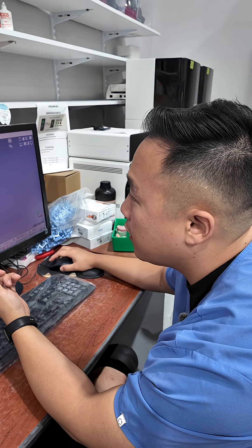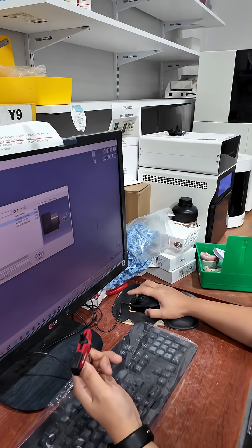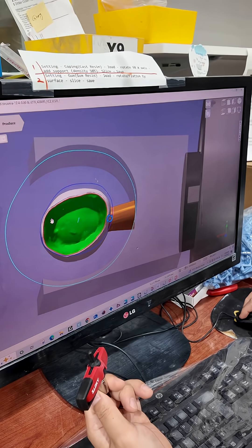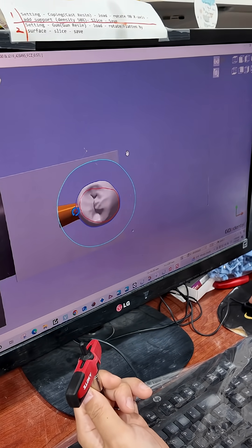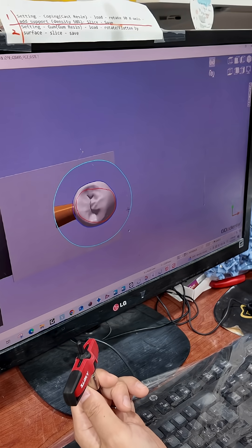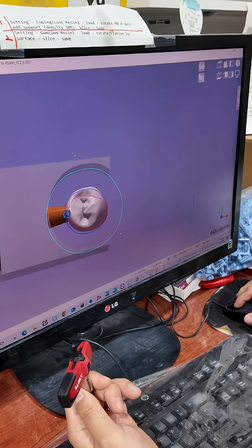Now we'll be importing our crown into the Go To Dental software. Let's open it up and choose that one. The margin looks good, clear margin positioning looks good. We don't want it too far back, otherwise it'll kill a lot of the tooling life just to get it down. But otherwise it looks good — go to Produce.